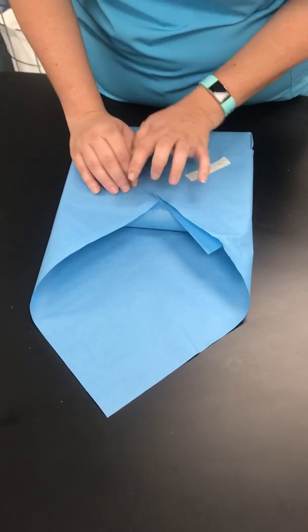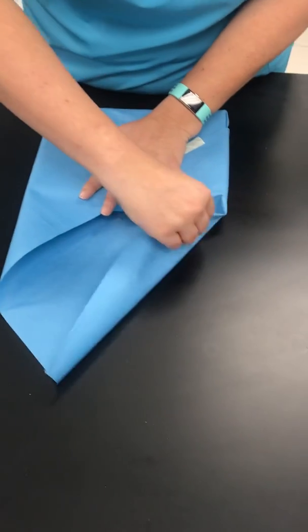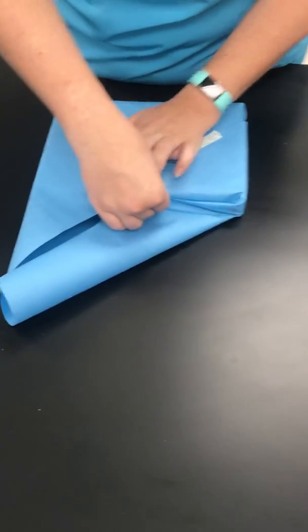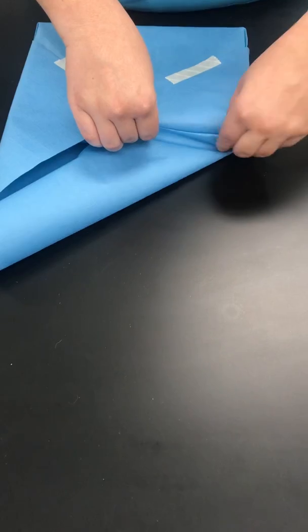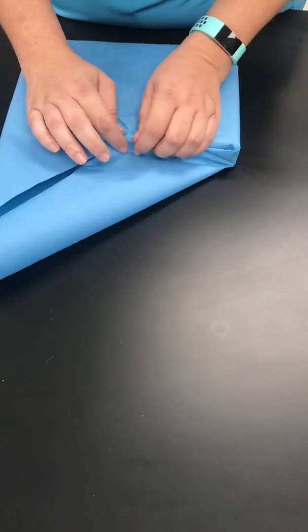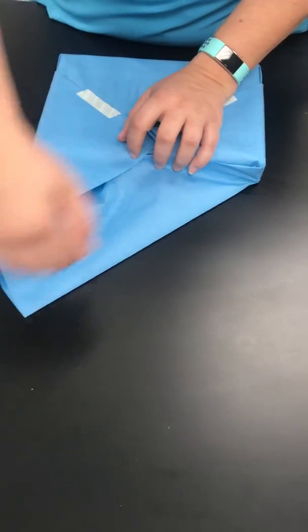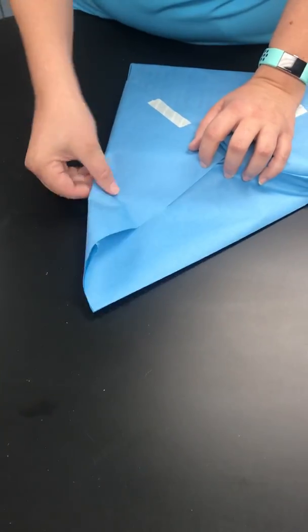To work on this edge, you're gonna hold with your pinkies. So fold one side at a time, getting your corner tight, hold with your hand, make your crease, and fold the other side.